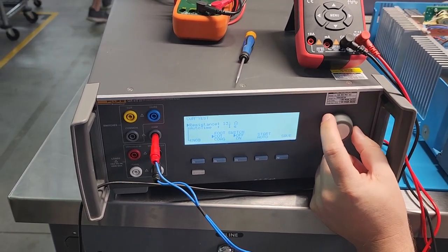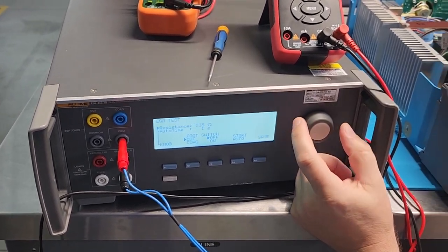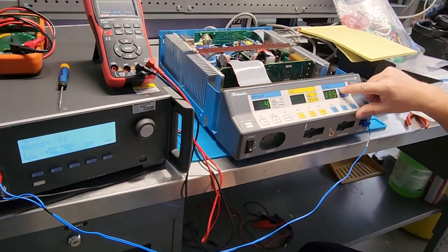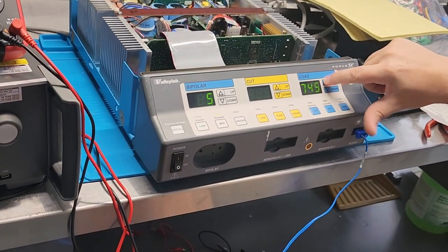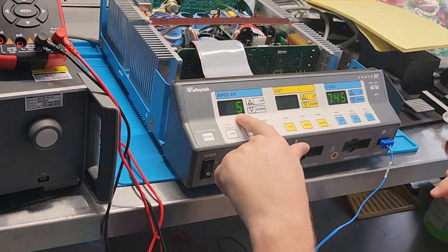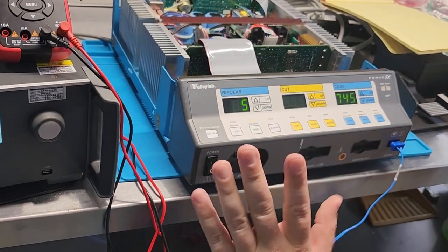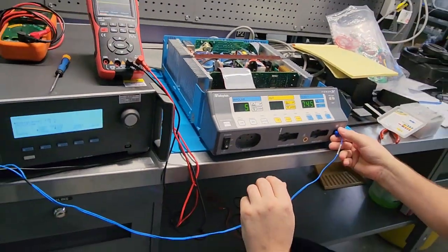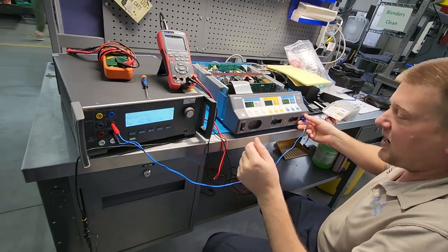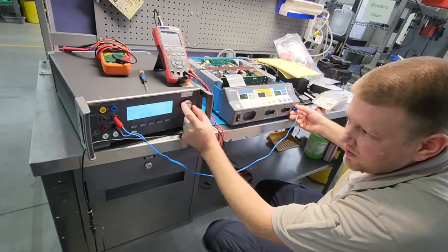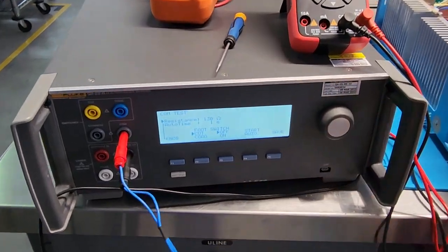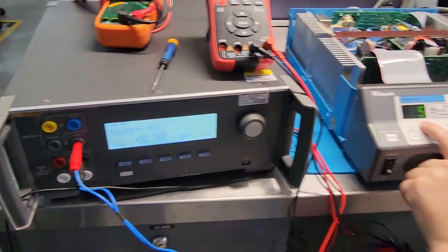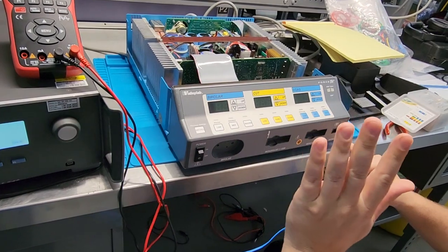It's jumping around pretty fast. Okay, baby steps. Give it a couple seconds to normalize. We'll hit it. And notice it jumps to the next sequence, which tells you that our REM is done. It's good to go. So now what we got to do is test it. So I'm going to take my tester down to 130 ohms. We're still in programming mode. So what I'm going to do is I'm going to shut this bad boy off.